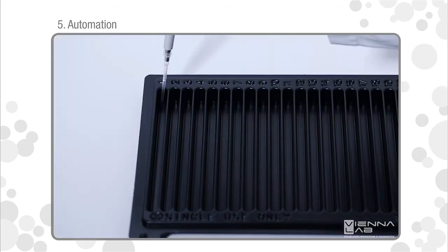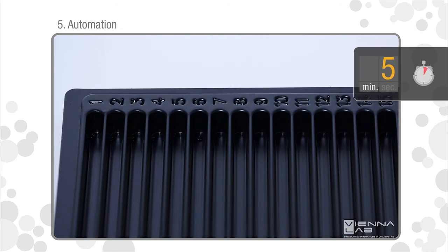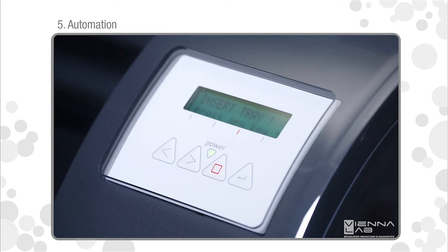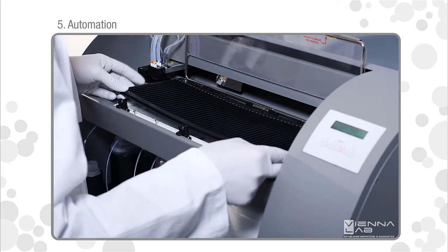Pipet DNAT and amplification product in typing trays. Let stand for 5 minutes at room temperature. Load typing tray and confirm the next program step.